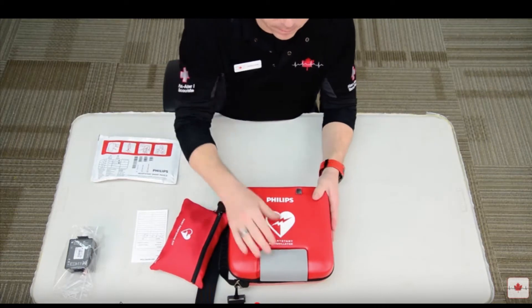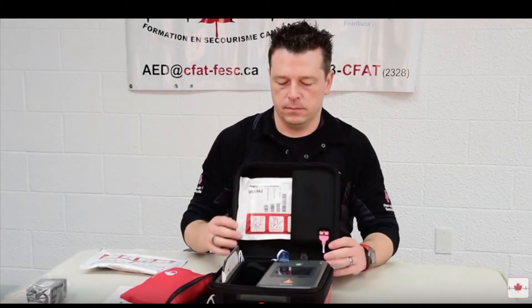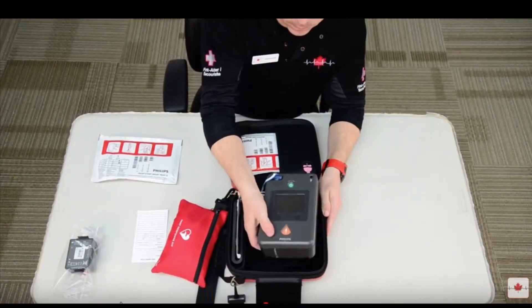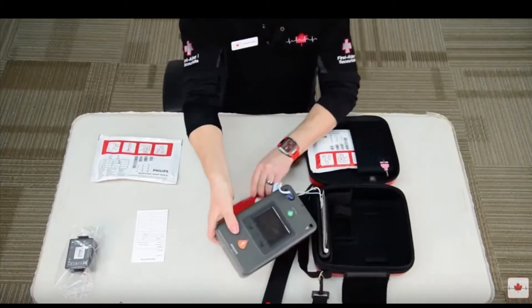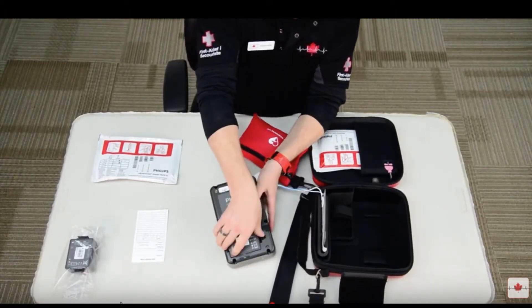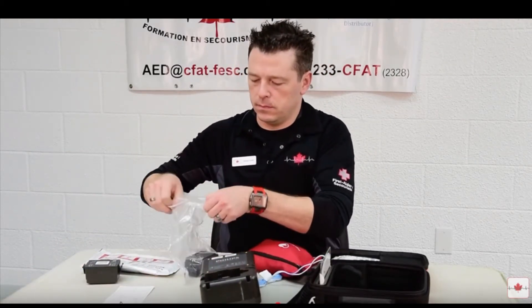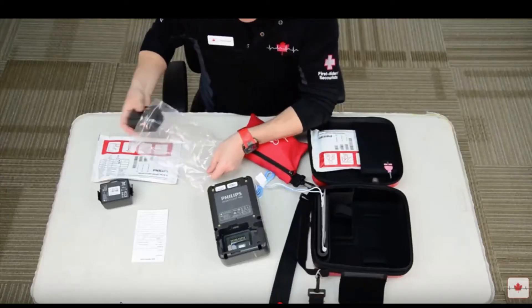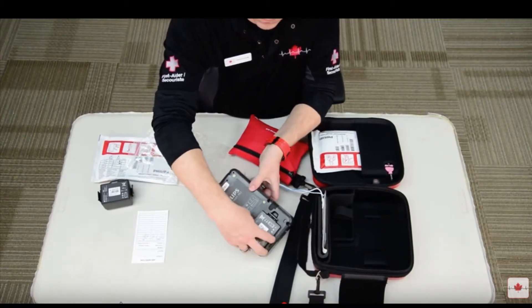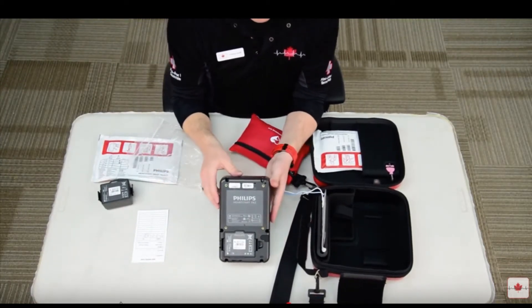Now that we have the AED in front of you: undo the velcro on the soft AED carry case, or if you have the hard case, undo the latch. Take out the AED, then remove the battery from the AED. Remove the new battery from the plastic packaging and insert it into the AED — bottom end first — into the battery compartment on the back of the AED.